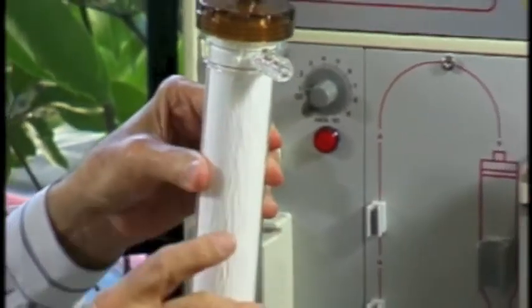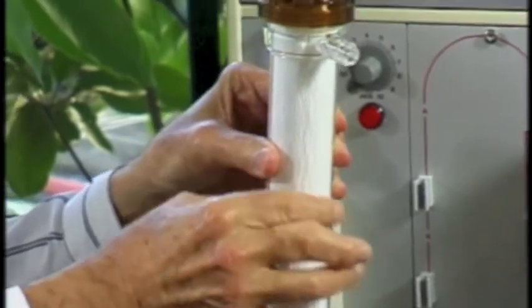So the other part of this process is that as the blood is pumped through these hollow fibers, we're able to change the pressure through which the blood is flowing. We change the pressure and make it more negative on the outflow side of the hollow fibers, and by doing that it's like applying a clamp. It increases what we call ultra-filtration of water through these hollow fibers into the dialysate. To make this more possible, we add glucose to the dialysate bath, and glucose is osmotically active. The glucose literally pulls water from the blood across that semi-permeable membrane which makes up the hollow fiber, and that water gets into the dialysate and is discarded the same way as the potassium.